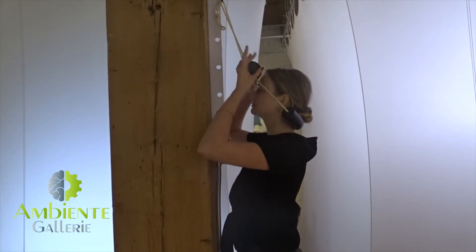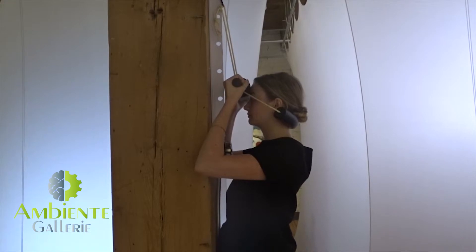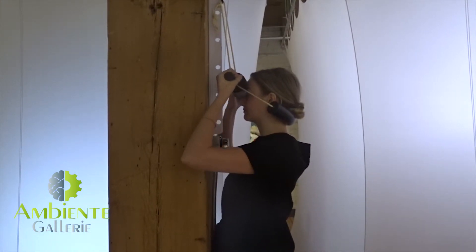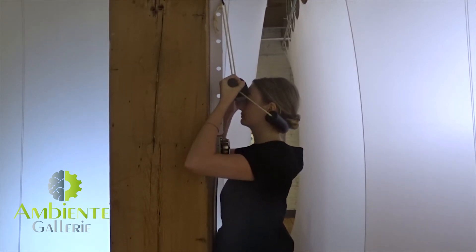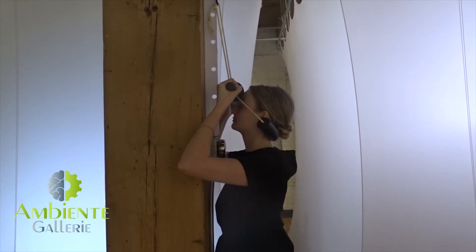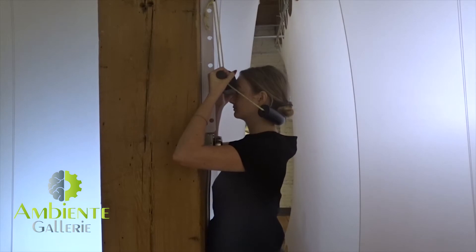The other piece up top is going to rest on the forehead. With that pipe, the hands are going to hang on to it so that the tension against the forehead is enough so that it's not slipping. Toes will go all the way up to the wall, then bend the knees, dropping the hips down and keeping the hips pressed down and behind you. A nice little arch on the low back helps to create a deeper stretch and effectiveness for the neck and the upper back.